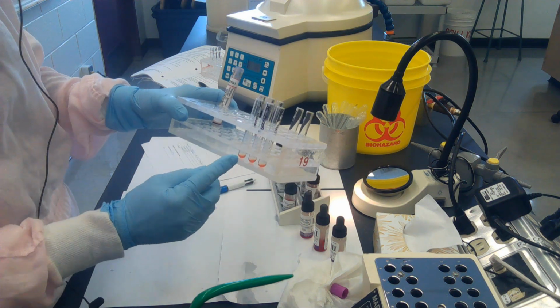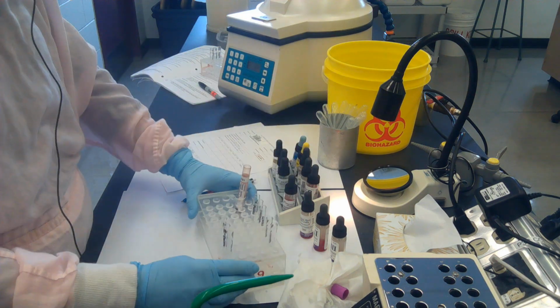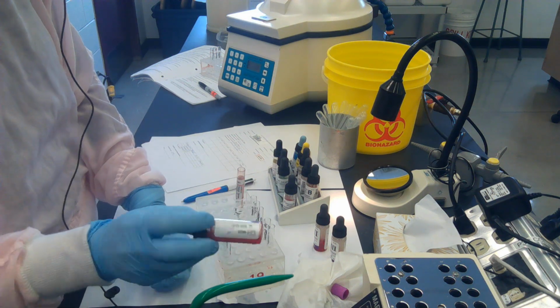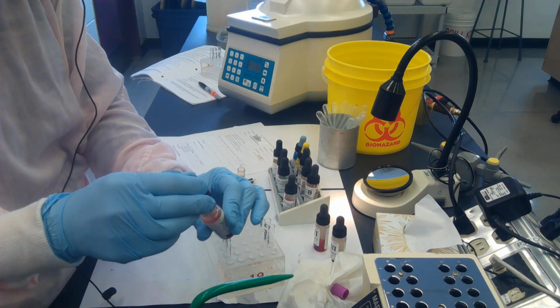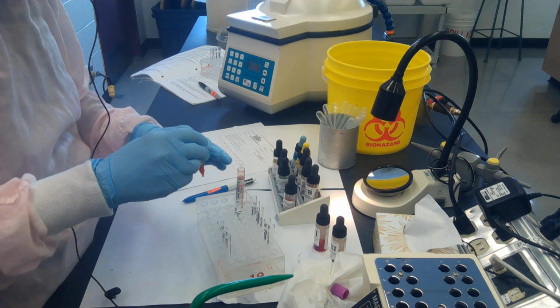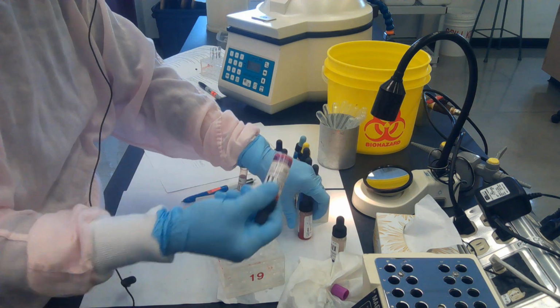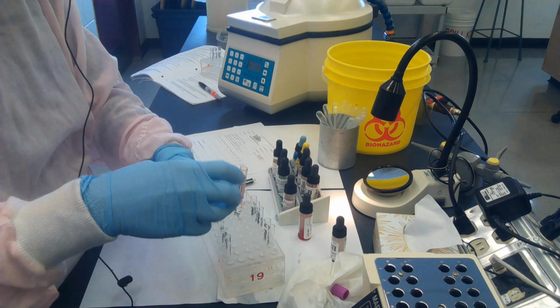We've got plasma in my screening cell tubes, and I can see that the plasma is there, so that's important. I'm going to add my screening cells. My screening cells come in a bottle, and you must ensure that they're well mixed so that any cells that have settled out on the bottom are mixed into the screening cells. I pick up 1 drop, and again, using good pipetting technique, I'm going to drop the 1 drop of cells into each of my screening cell tubes.